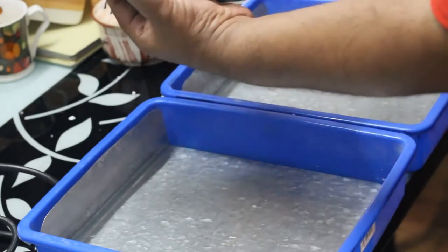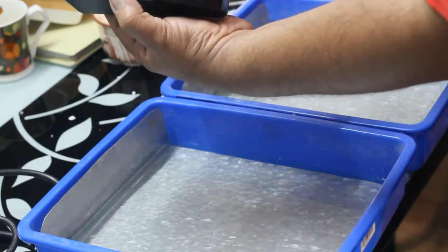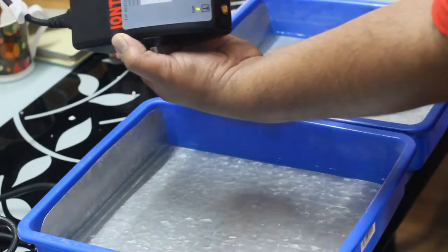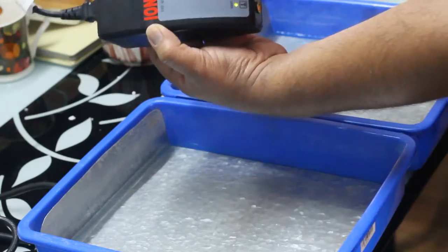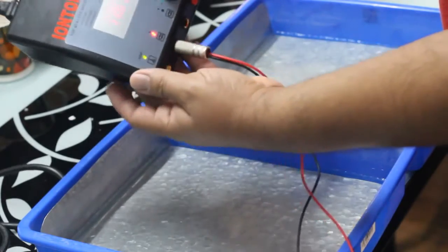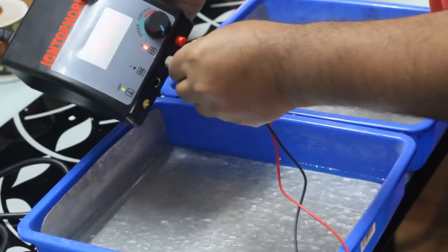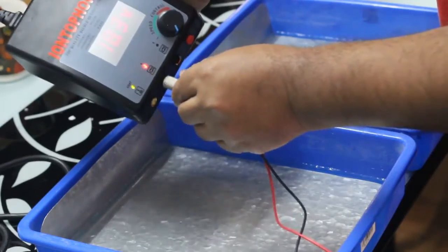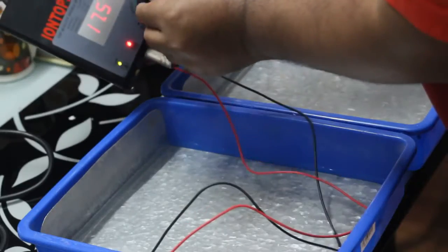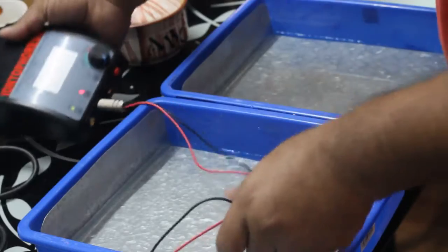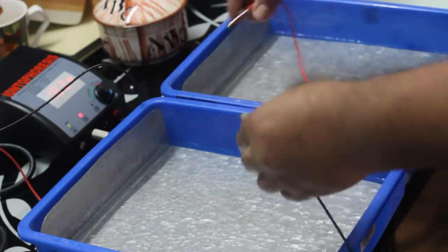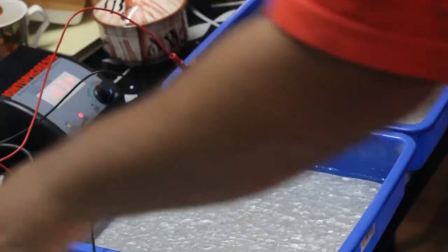Now I'm putting the plug in. You know, 1.5 is the minimum and 18.5 is the maximum intensity. The both S and L are the same outlets. The red button indicates which outlet can be opened by increasing the intensity of the button. Once you increase the intensity, you will come to know which outlet you have to use. I'm right now putting it in L. L and S again are the same outlets. Red button is to change this outlet. If it is S or L, it's your choice. Wherever you want to put, you can put. But the indication will show where to put.